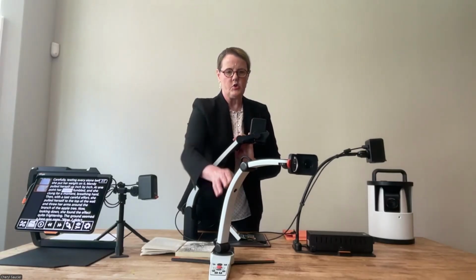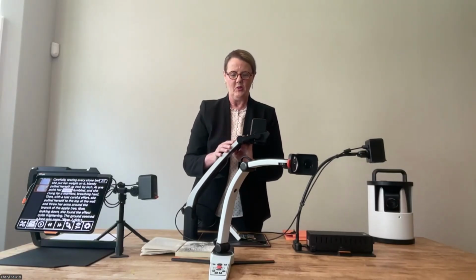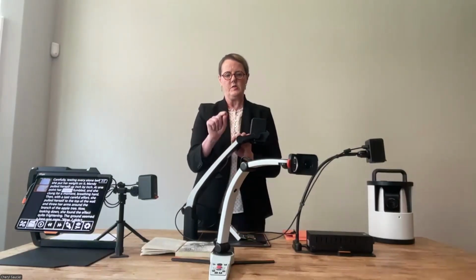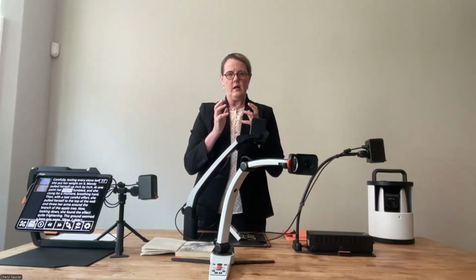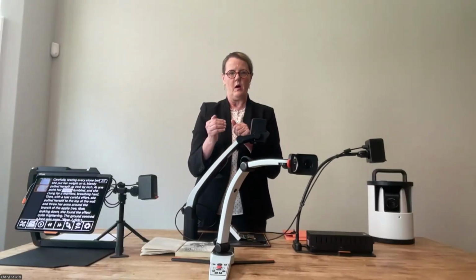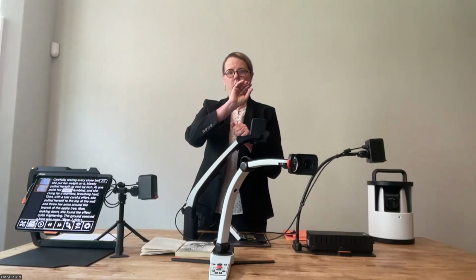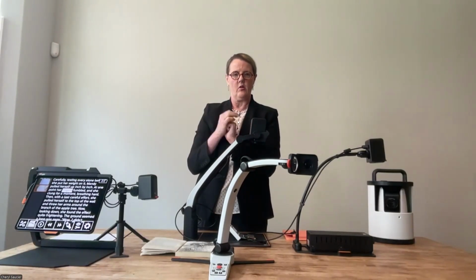And then the Magnilink S. My favorite story about the Magnilink S and its ability to be all things to all people is a customer that I have in Kentucky, and she uses that Magnilink S downstairs in her screen porch. She'll connect it to a monitor, point the camera outside, and enjoy her hobby of bird watching. She's got a series of bird feeders and bird houses, and she'll point that right out there and pop it up on her screen and enlarge it so she can see the hobby of bird watching better.